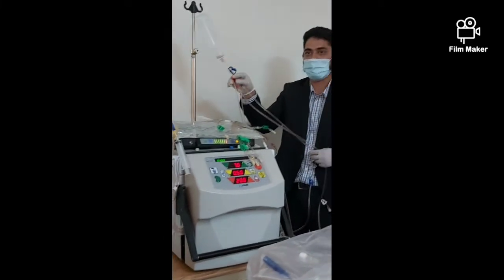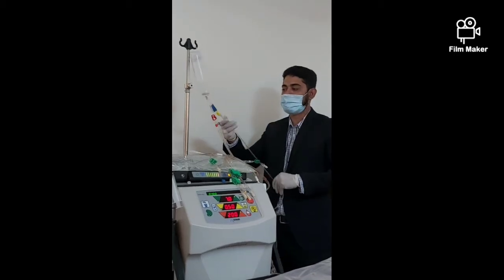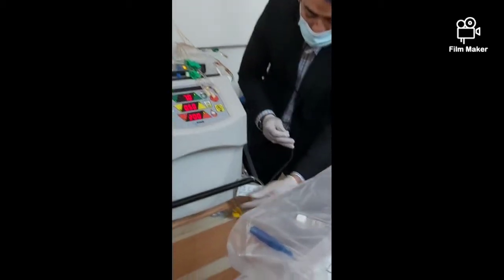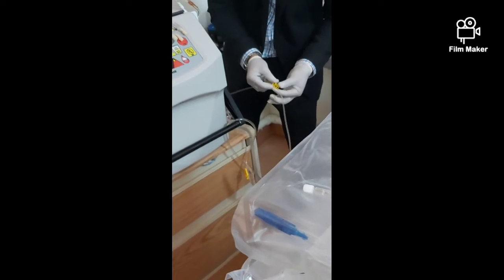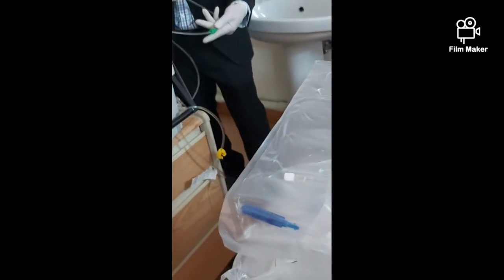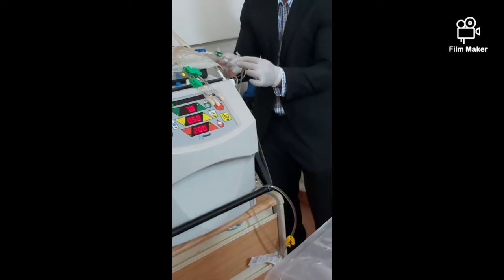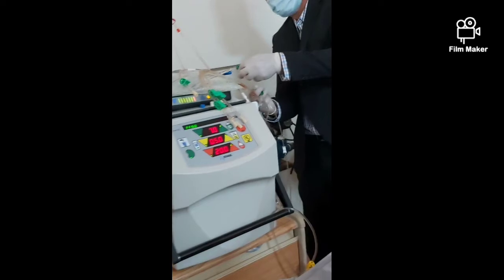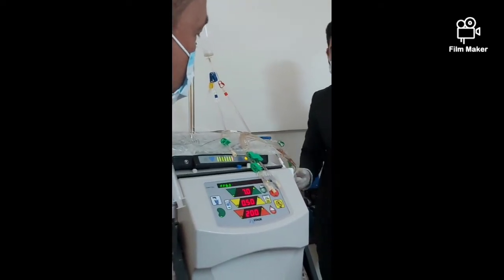Once connected, disconnect the drain line and connect it to the patient. The yellow drain line goes yellow to yellow — match them up. After connecting, don't forget to open the clamps. The fourth connection: green to green, color to colors — match this one and this one, green and green. Don't forget to open the clamp after connecting.